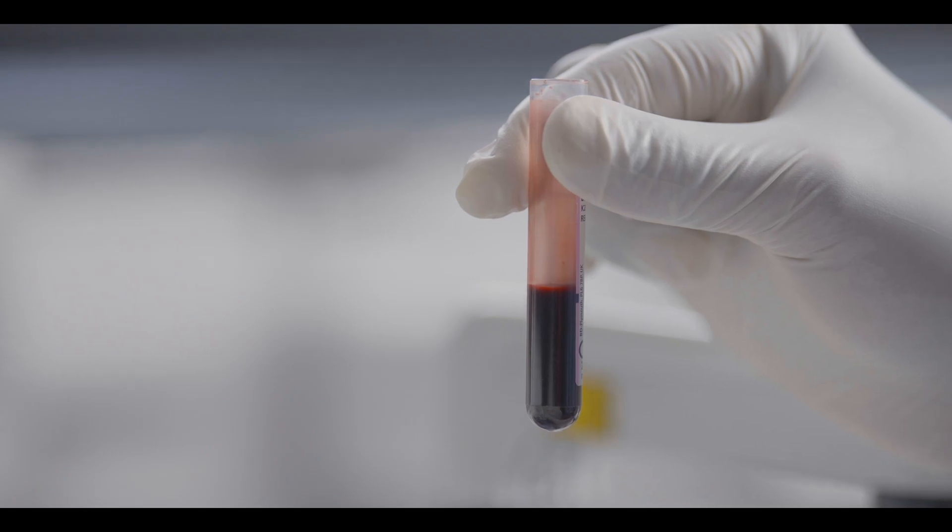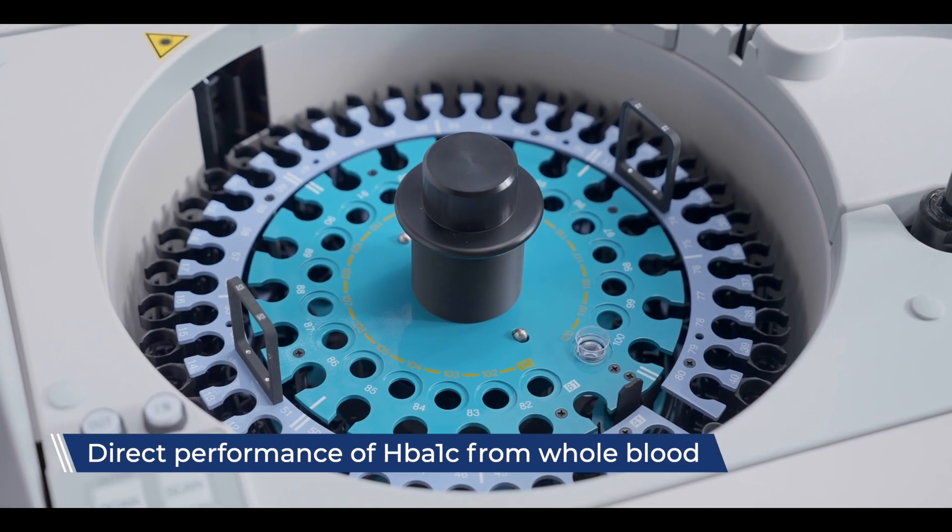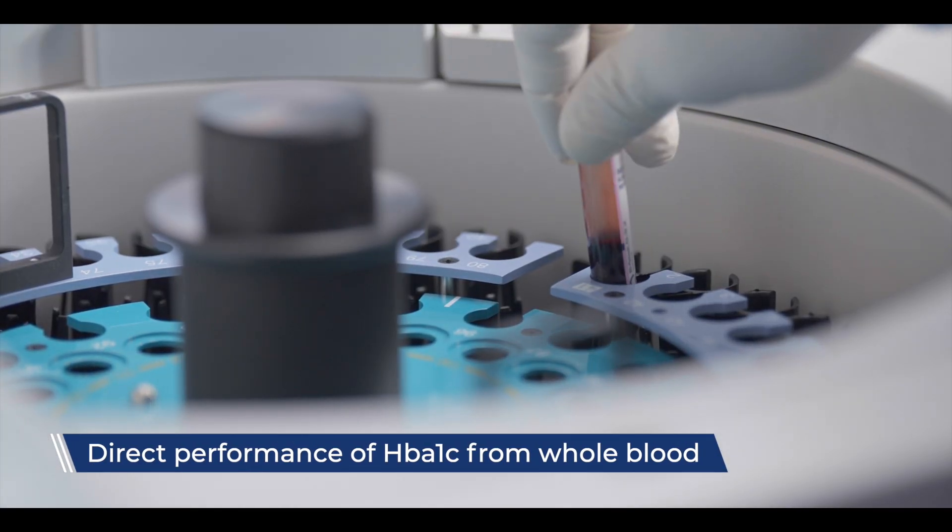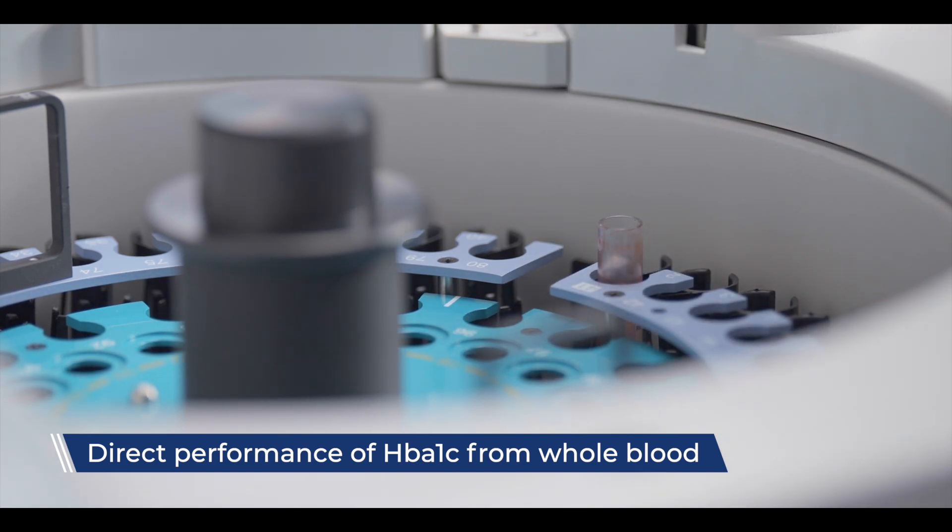Notably, HbA1c, one of the important parameters in laboratories, can be directly done from whole blood within the TBA-120FR.